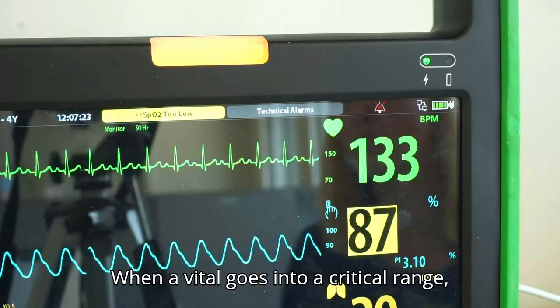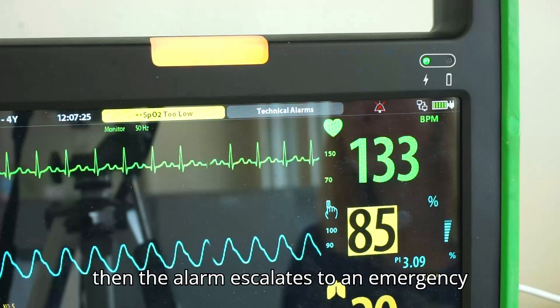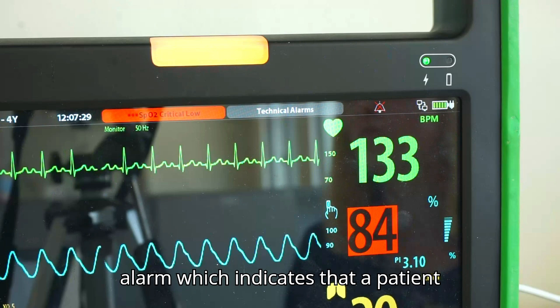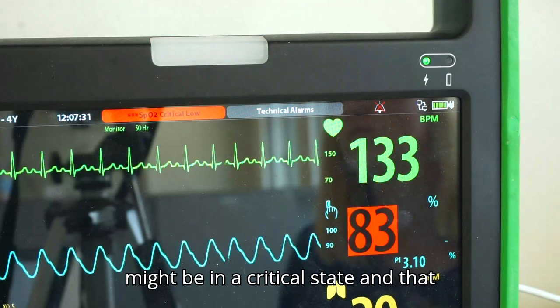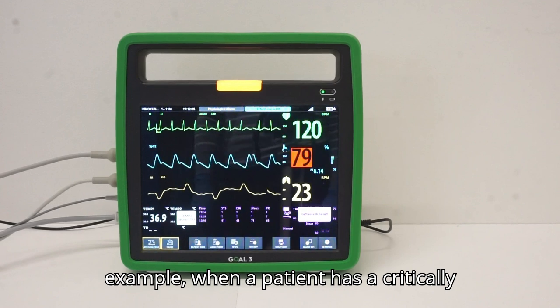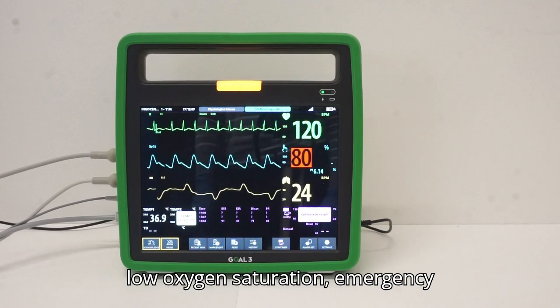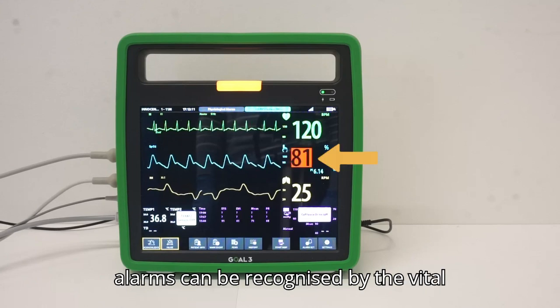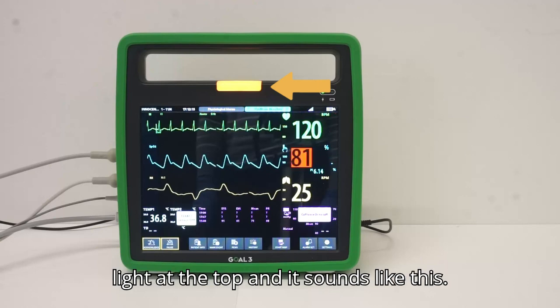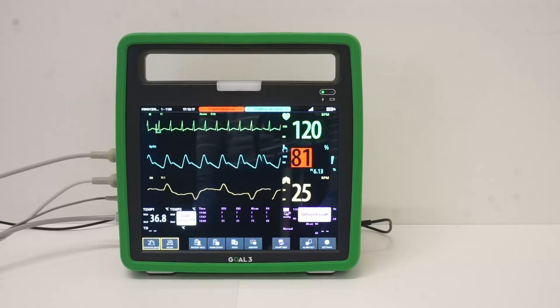When a vital goes into a critical range, then the alarm escalates to an emergency alarm, which indicates that a patient might be in a critical state and that immediate response is required. For example, when a patient has a critically low oxygen saturation. Emergency alarms can be recognized by the vital being highlighted in red, a blinking red light at the top, and it sounds like this.